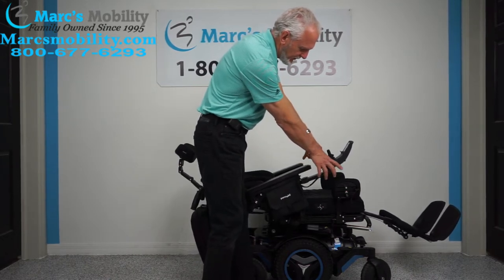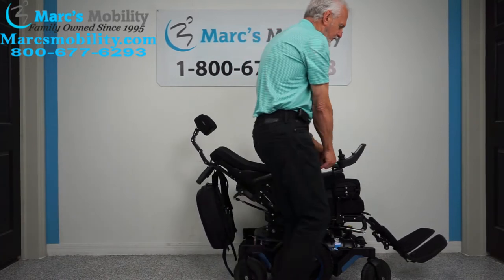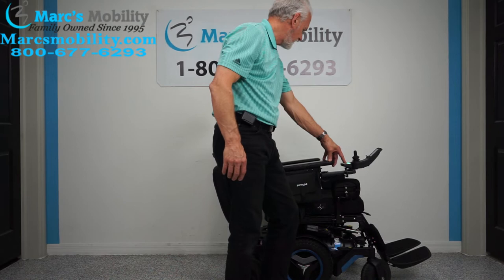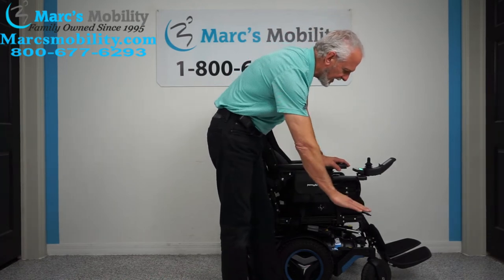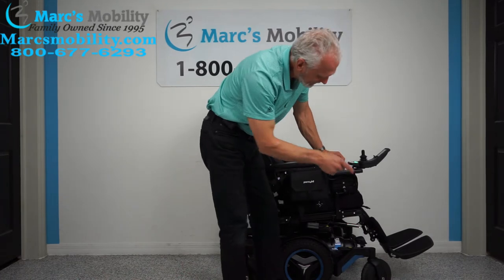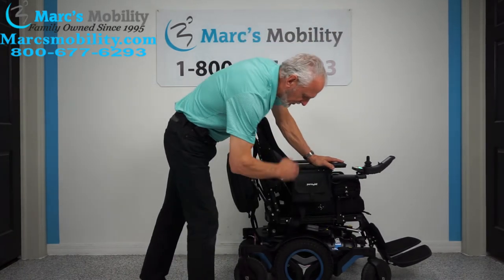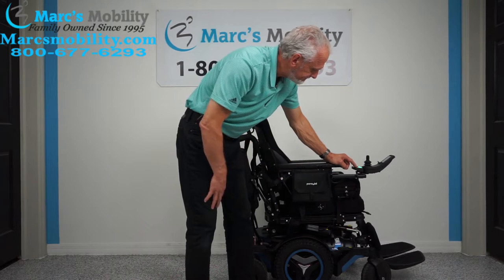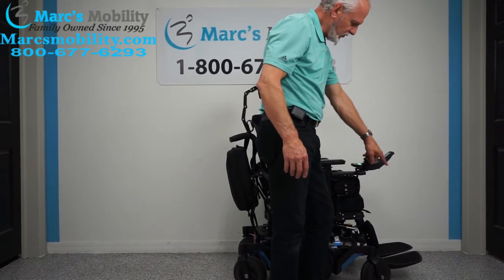If you want to do two functions at once, you can do it through the joystick with one knob. When you're outside, try to leave your legs out a little bit — that gives you more room under your feet in case there's an obstacle on the sidewalk. Another tip: if you tilt the seat back just a little bit, look at the clearance height you gain, and you can still drive the chair. This is a mid-wheel drive, so the motors are in the middle.